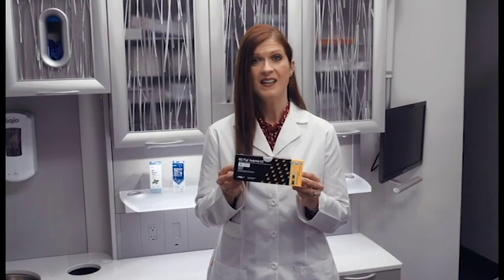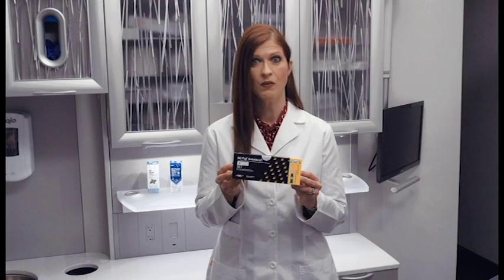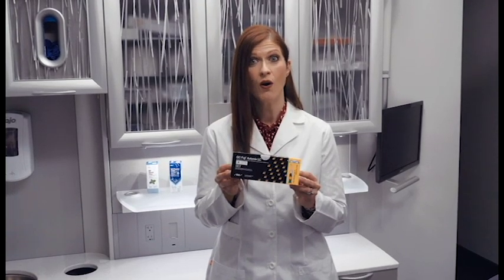I'm Dr. Pamela Miragliano-Munez and I have Fuji Automix LC from GC America. It's a new, radiopaque, resin-reinforced, glass ionomer restorative material in a new Automix system.